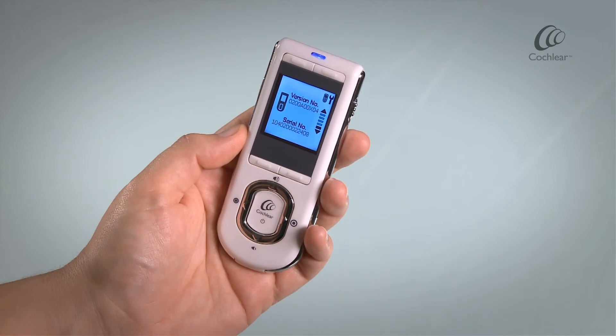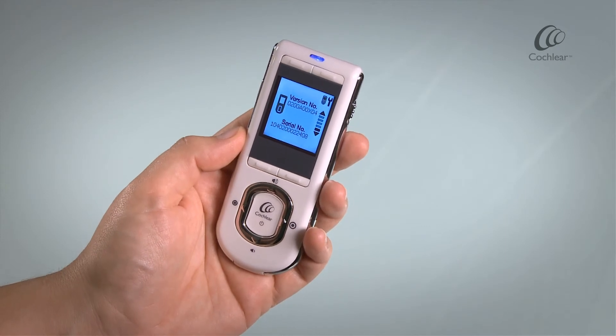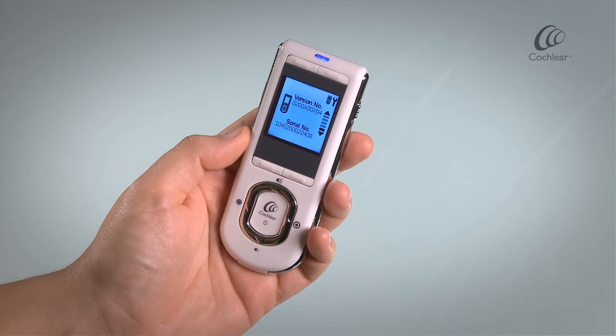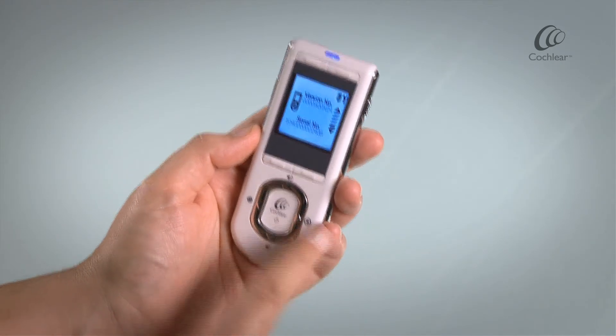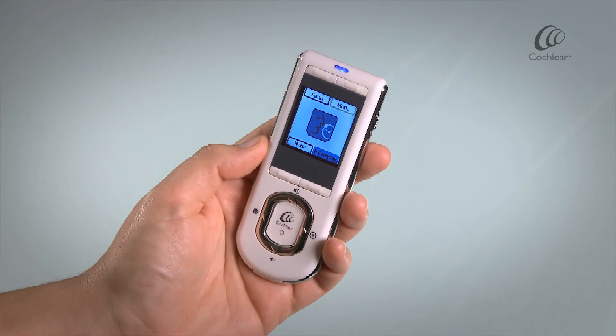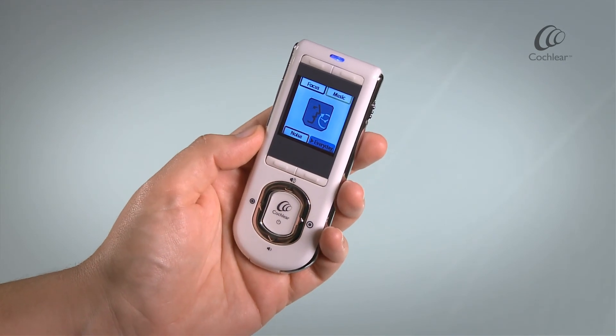You can also view your remote assistant information. Press the cochlear button to return to the home screen.